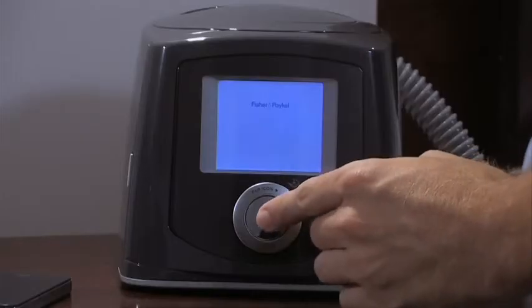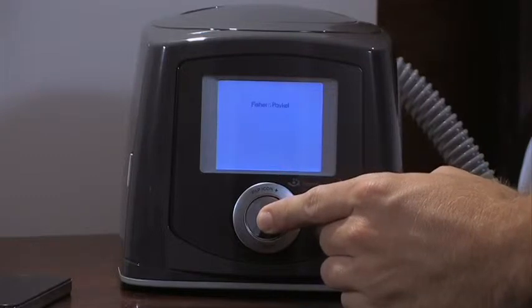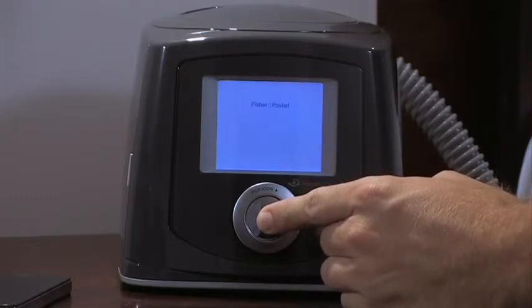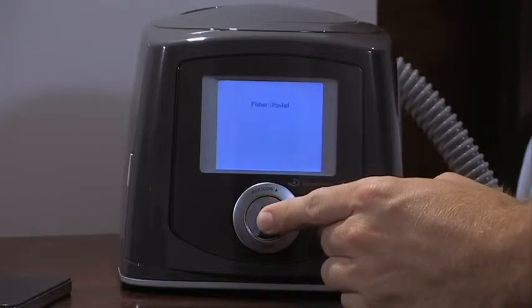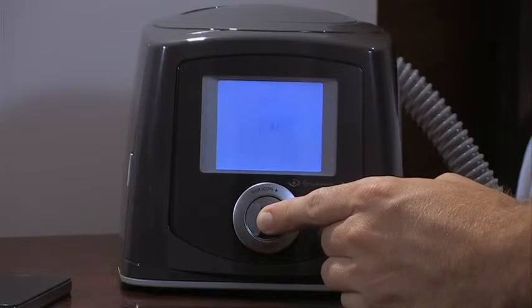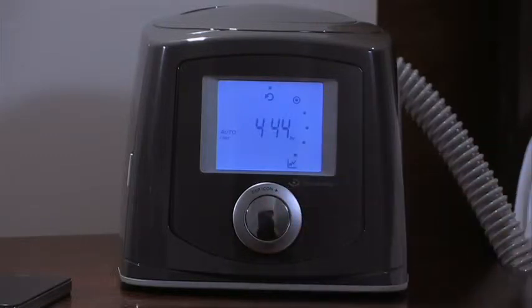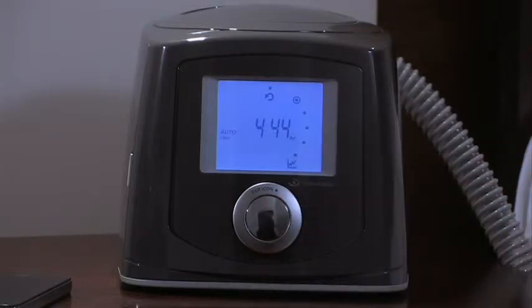Press and hold the smart dial for 7 seconds to access the sleep data setting. Turn the smart dial to scroll through each of the following statistics.